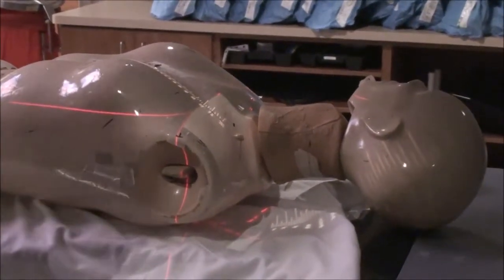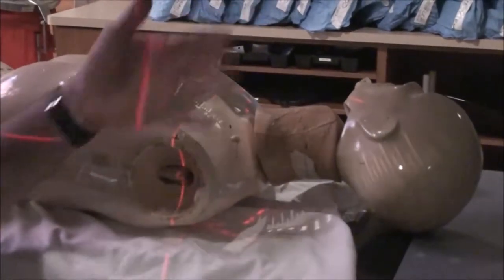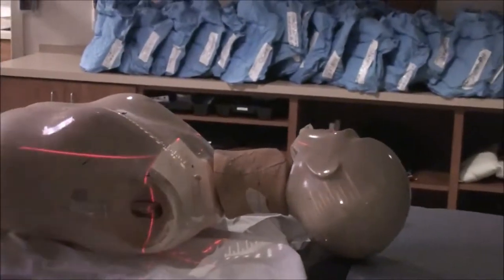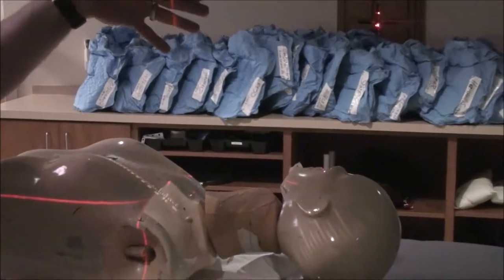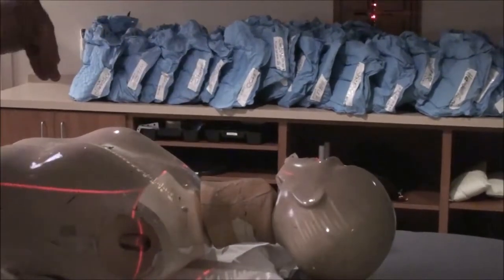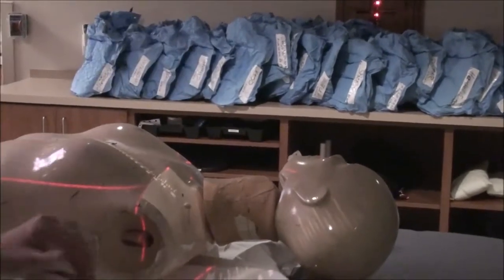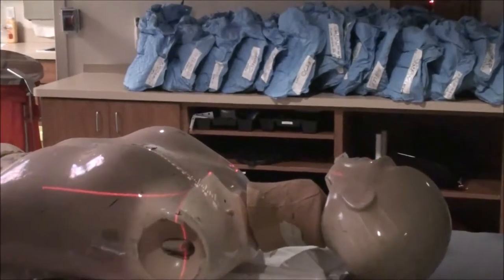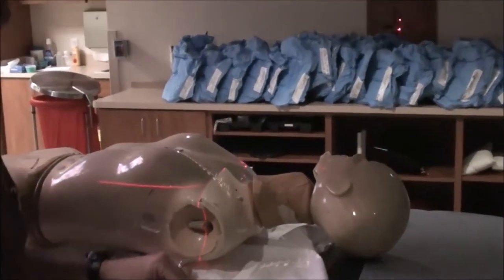We're going to assume a straight upright gantry, but you can also do a 15-degree tilt. As you may recall, you can do a 15-degree tilt so that you don't have divergence from the medial aspect of the supraclav field into the spinal cord or possibly into the throat — it flattens out that divergence. We'll go ahead and go 15 degrees over. That's how we do it at my particular facility. Your mileage may vary.